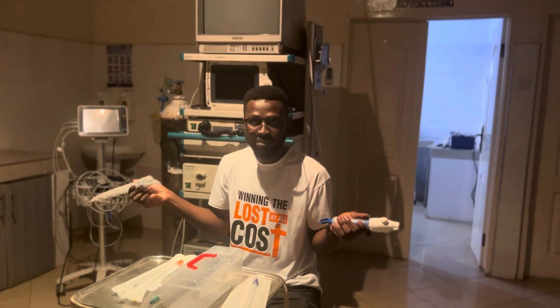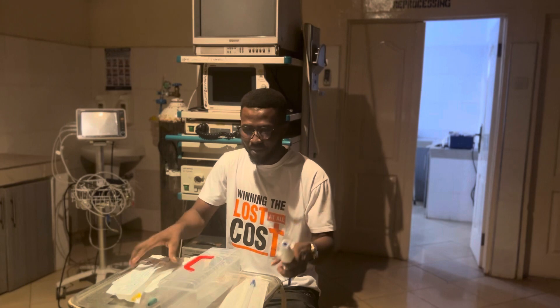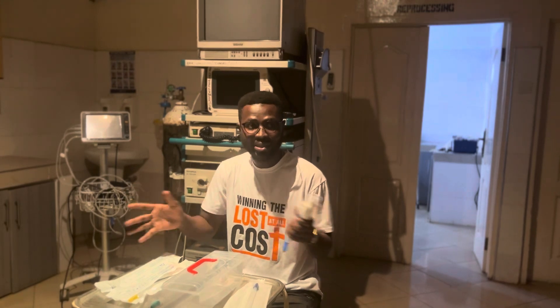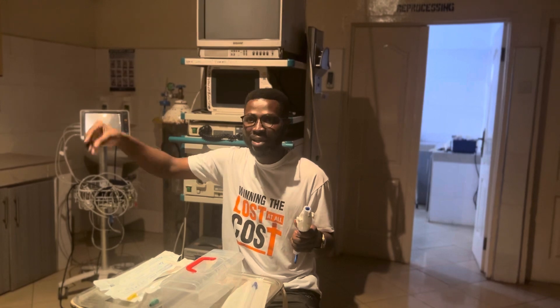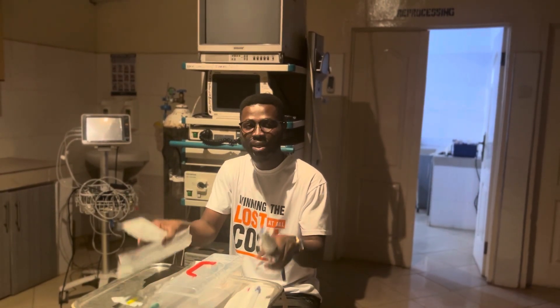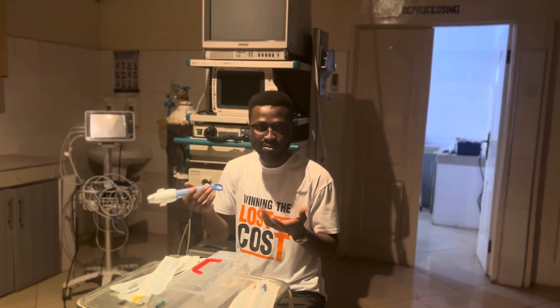Why not just create one cannula form for all? It depends on the gestational age. As you will see, there are about eight cannula sizes: four is the smallest and twelve is the largest — four, five, six, seven, eight, nine, ten, and twelve, with no eleven. So eight cannulas come with one manual vacuum aspirator kit.